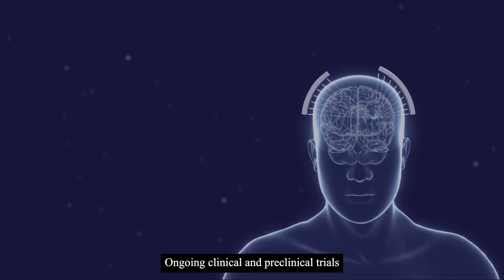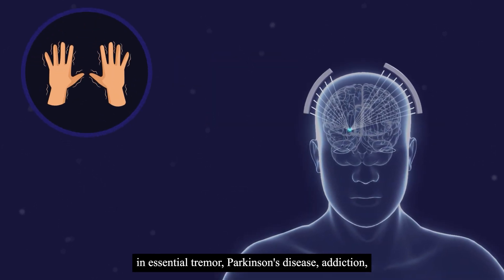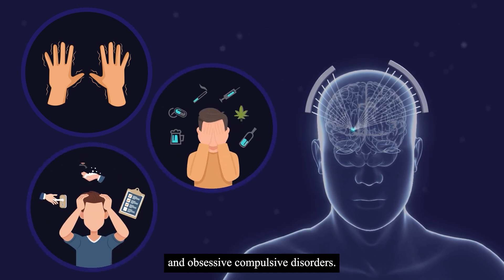Ongoing clinical and preclinical trials are looking at the use of focused ultrasound in essential tremor, Parkinson's disease, addiction, and obsessive-compulsive disorders.